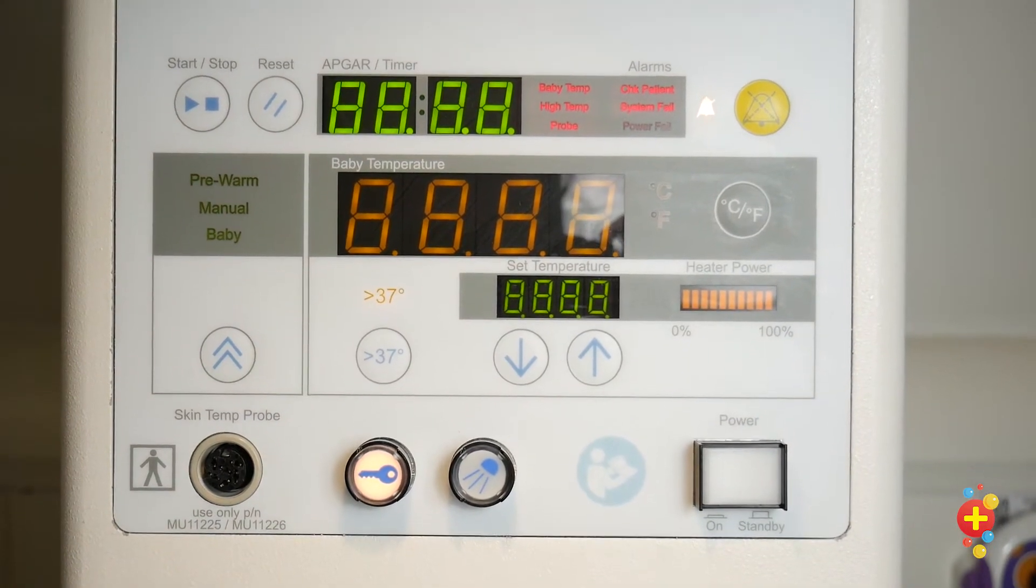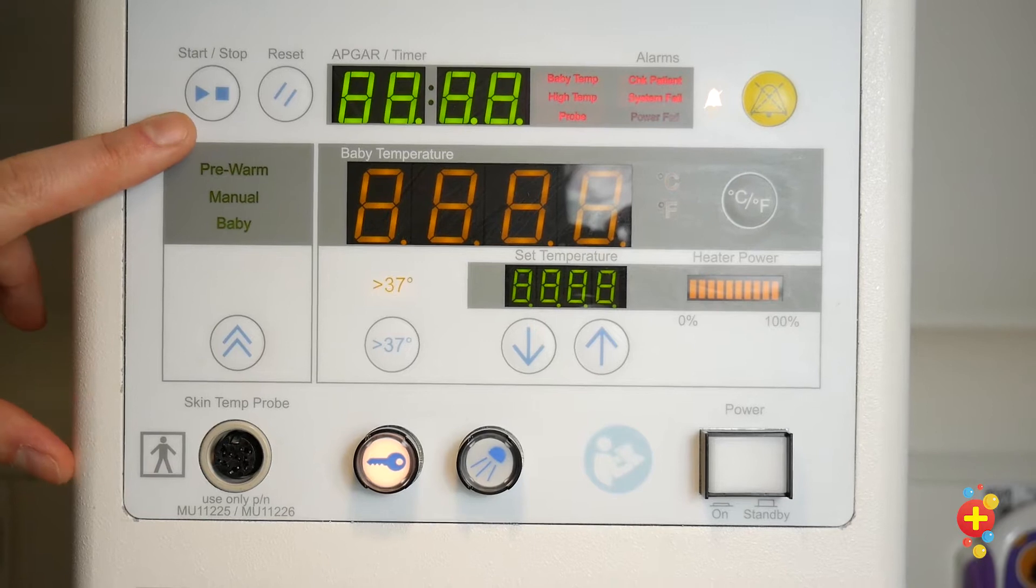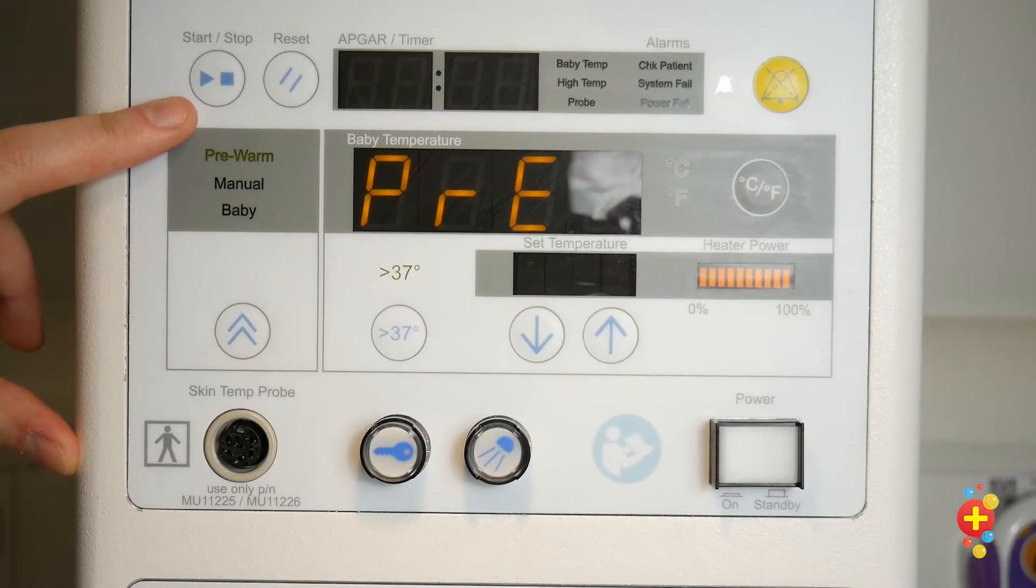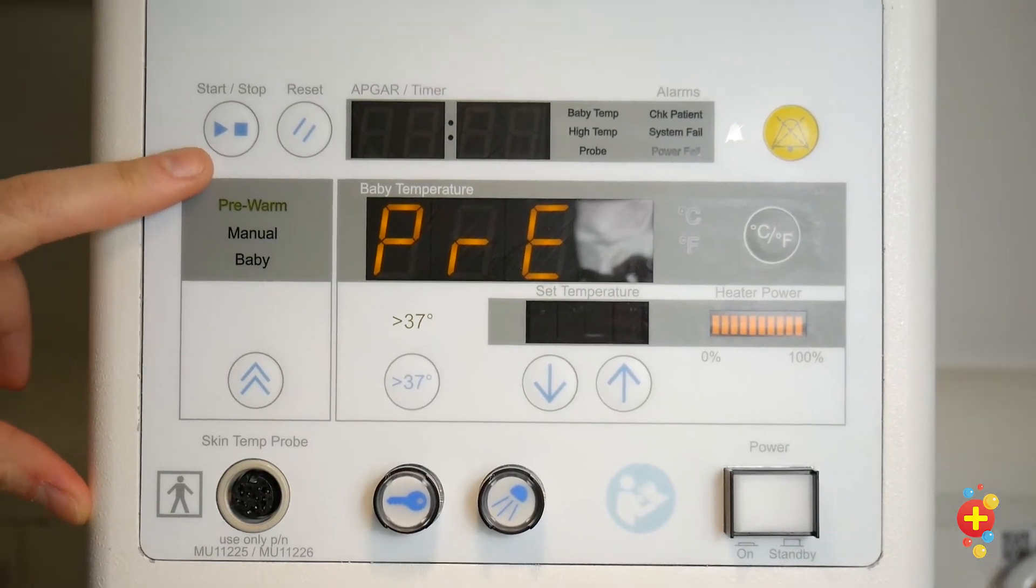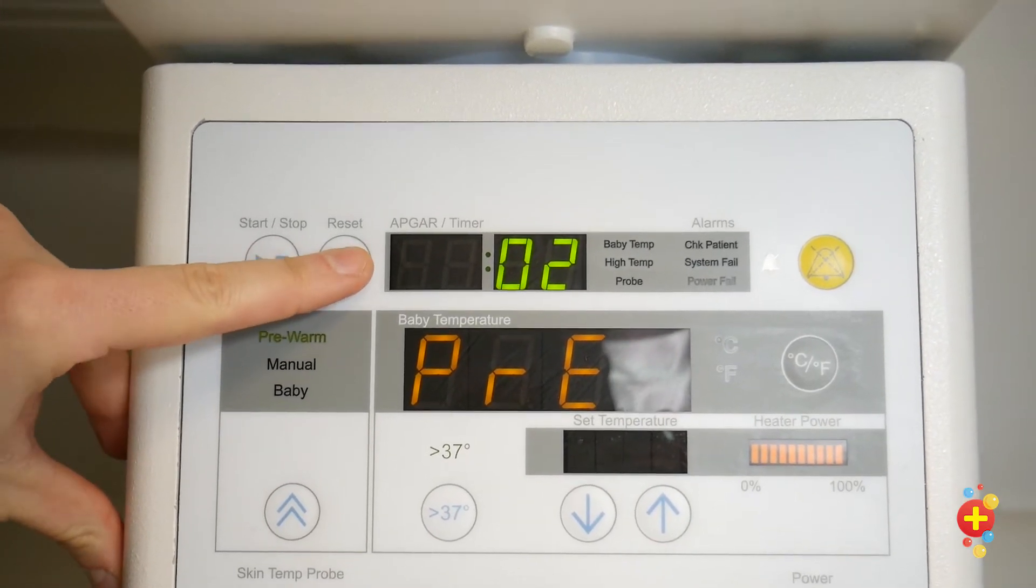We'll work from top to bottom, so to start with we have the clock or timer. This can be used to time your resuscitation. You start it, stop it, and reset it like this.